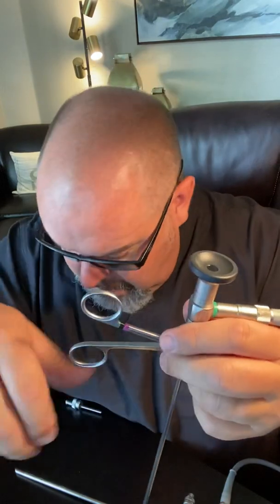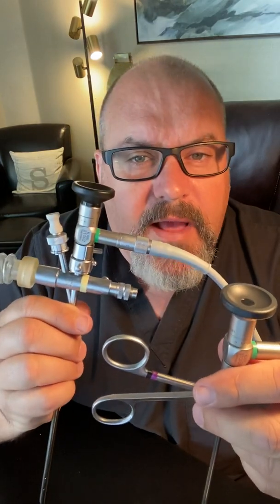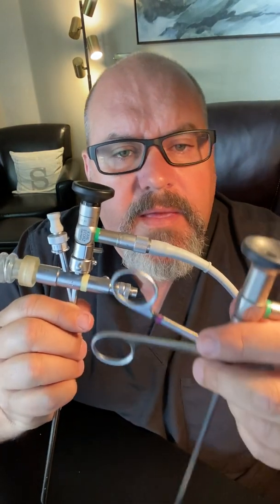Now, at this point, before the patient ever comes in, you have your rigid bronchoscopy set up and ready to go. You have your optical forcep set up and ready to go. You're going to want to put your telescope guide together — just put this little bonnet over the top of this.